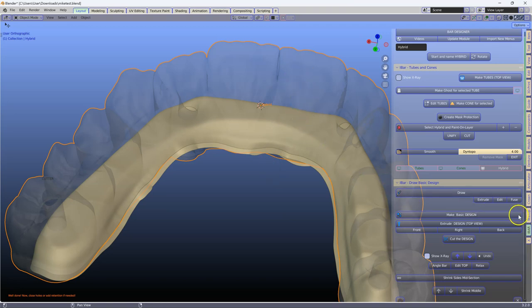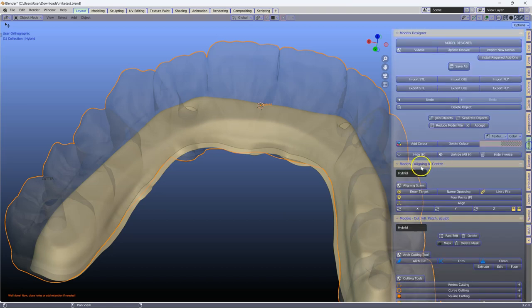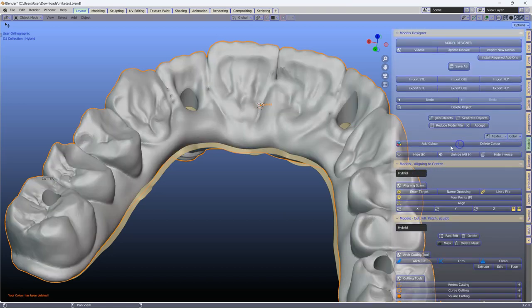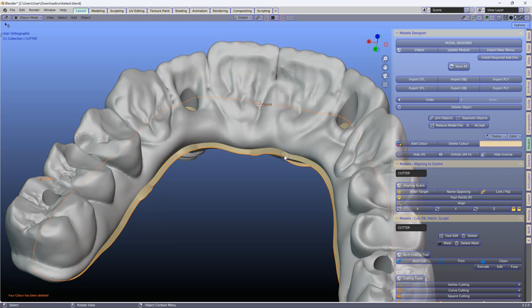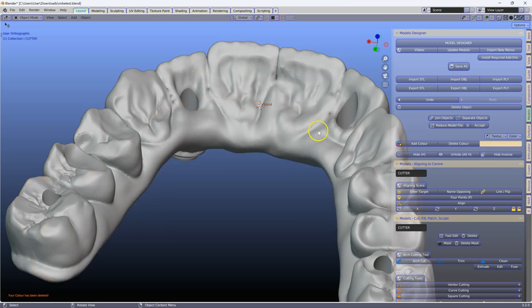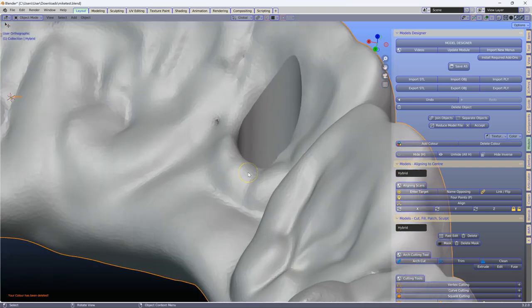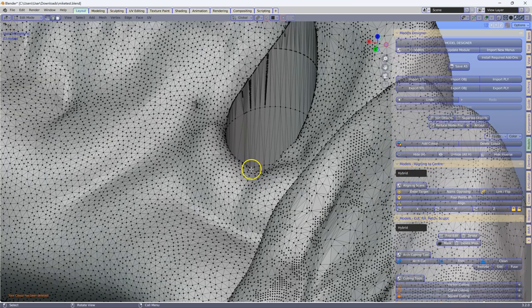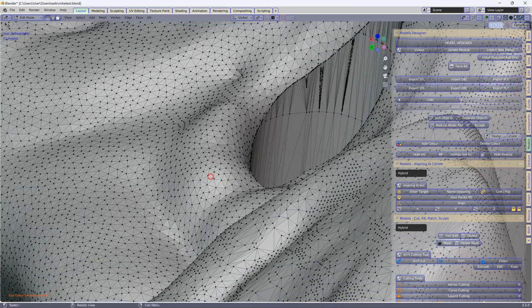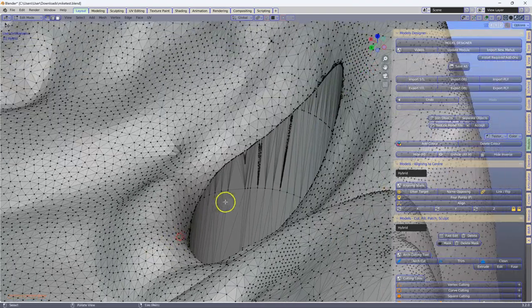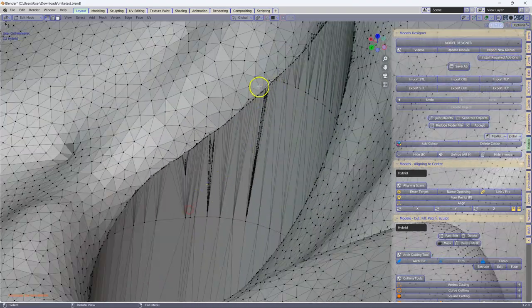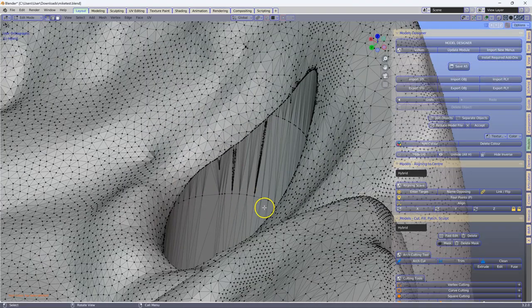Now this was done in Exocad, and we're going to quickly have a look and see what the flaws are. In the model designer, I'm going to delete the color and hide the cutting tool. Now if you look closely over here, we have all of these intersections happening in the hole.